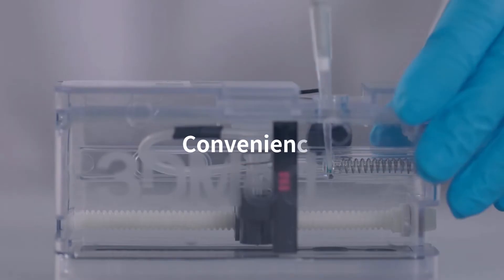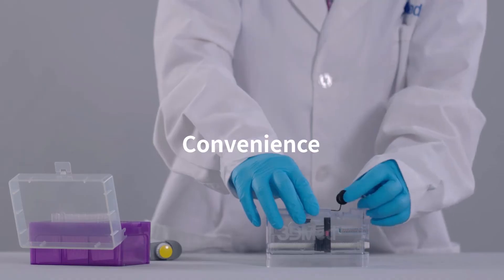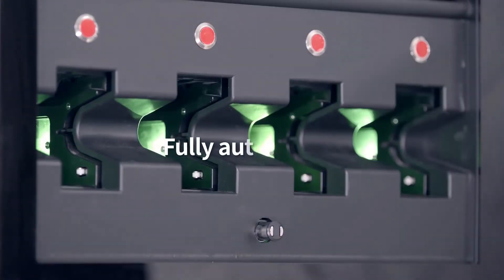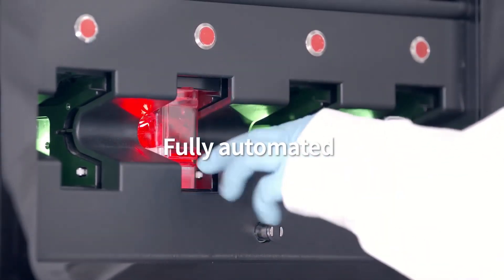Only one manual step to reduce hands-on time and eliminate human errors. Just insert the cartridge in one click to run.